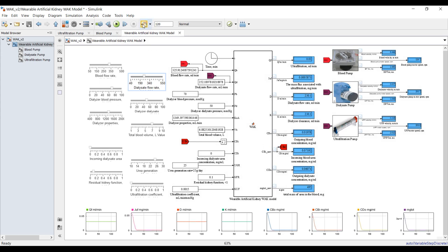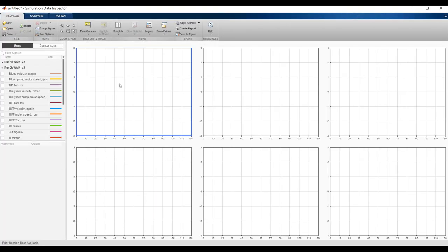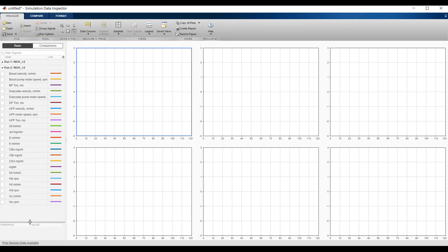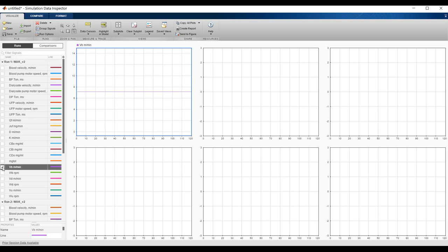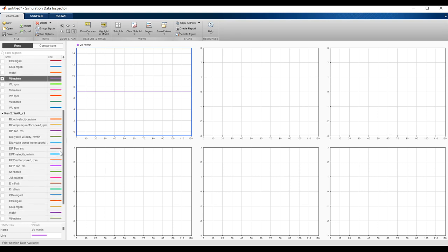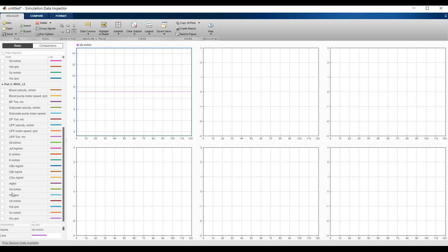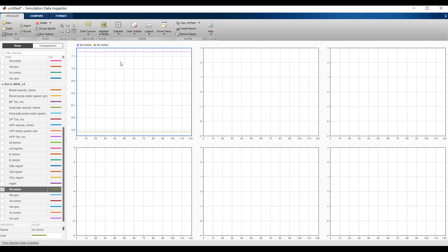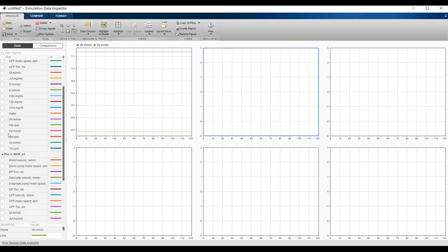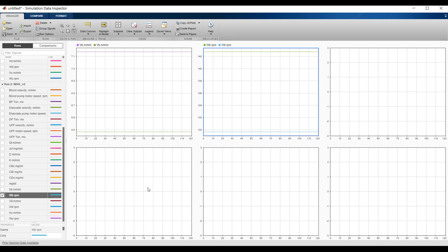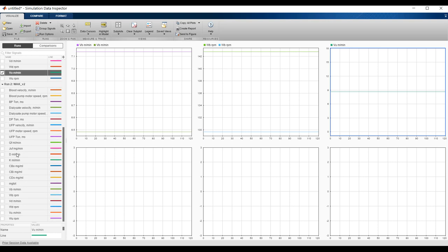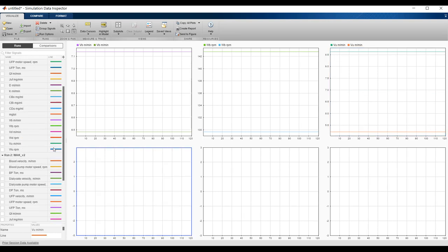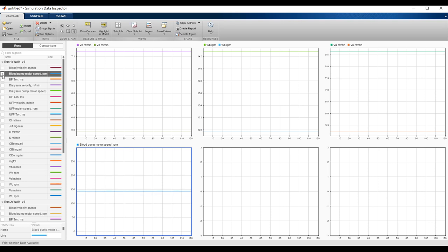We now have two runs to compare. This is VB in the first run and VB in the second run — you can see the difference. The same for WB in the first run and WB in the second run. Similarly, VU in the first run and VU in the second run.